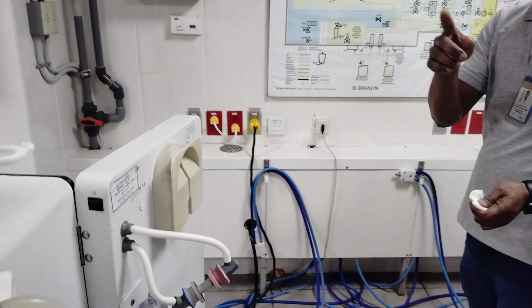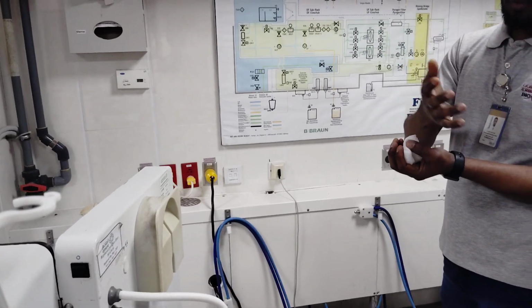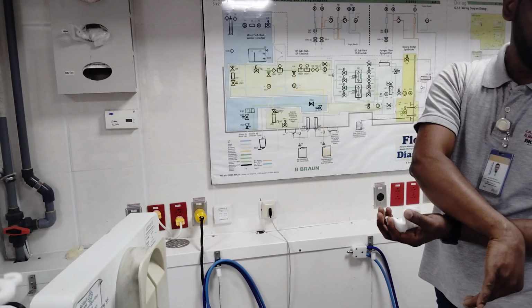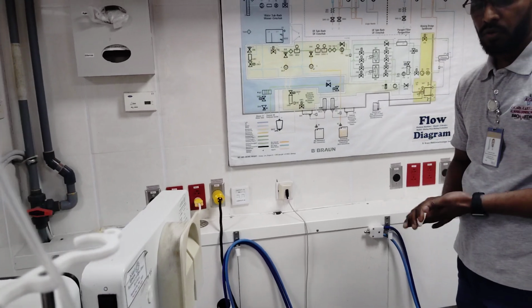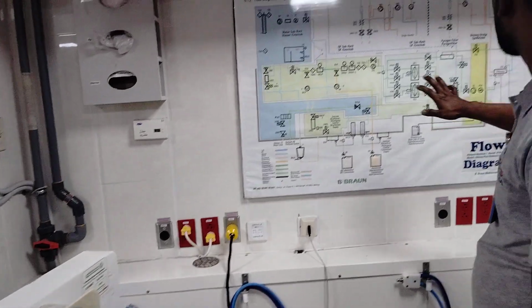So yeah, one part will go to the dialyzer. Once filtration is done, it will try to remove urine and whatever extra things have to be removed from the body. It is trying to pull them and send them to the drain. On the other side, blood will go back to the patient's body. These things we will see later. What is this? What is that? So these are the basic things I am trying to show you.